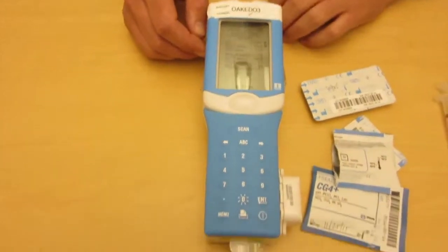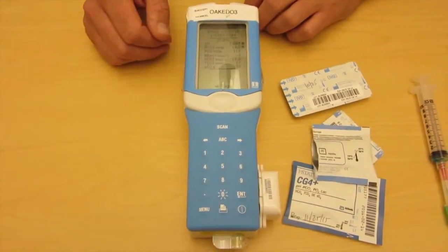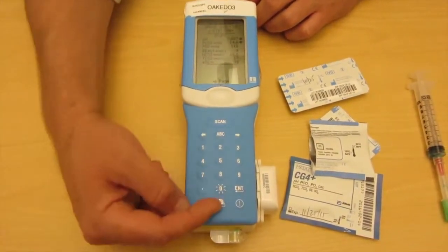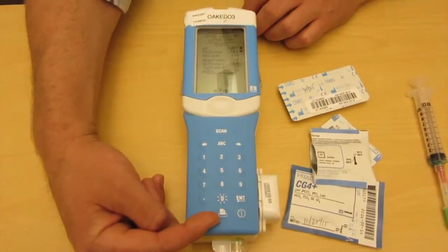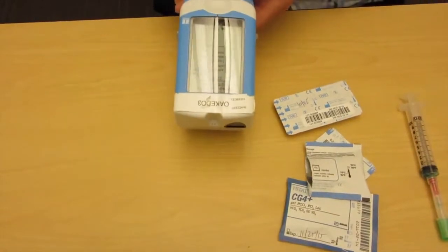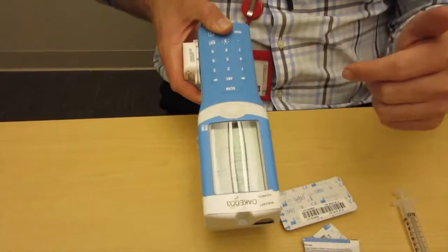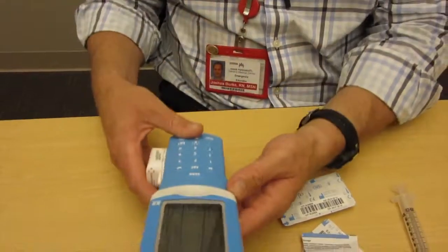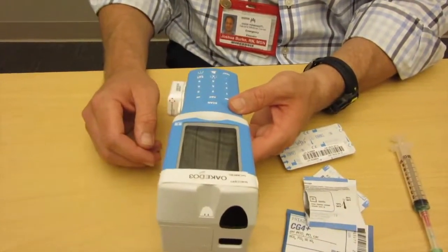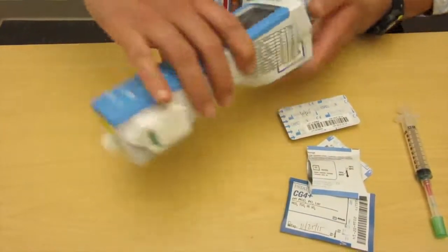Once that's done, we're ready to print. If you hold the device and point it directly at our local printers, press and hold the print button, it'll print out a display of the results. Then you can go ahead and dock it, and the results will synchronize into results review for the doctors to look at later. And that's it — that concludes the iStat.